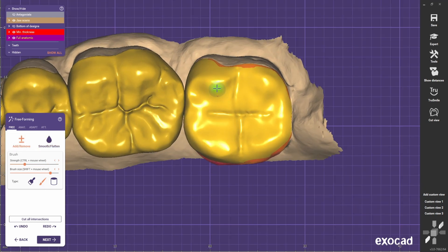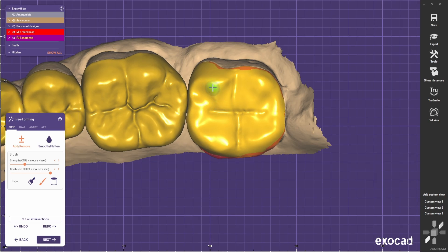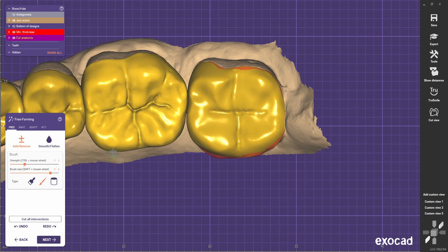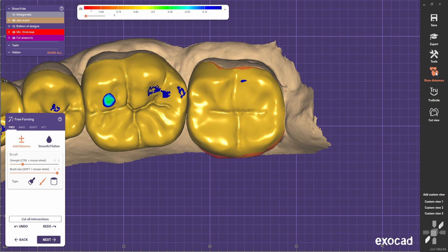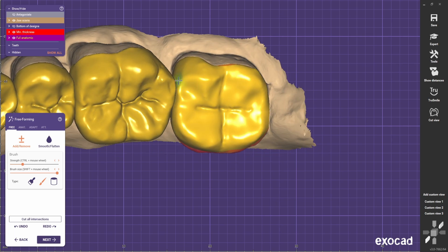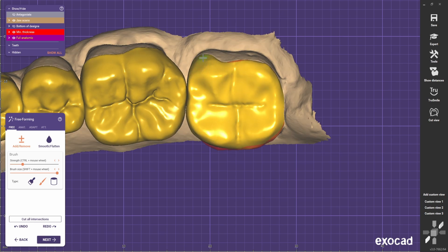What helps a lot is to create the ridges using again the thin tool, making the brush size bigger, but the strength shouldn't go too strong, otherwise you're going to have harsh lines — just go slowly and create the shape. We are a bit restricted space-wise, so I know that if I go too far I'll have to trim back when adjusting the occlusion. For now, let's try to make it as pretty as we can.